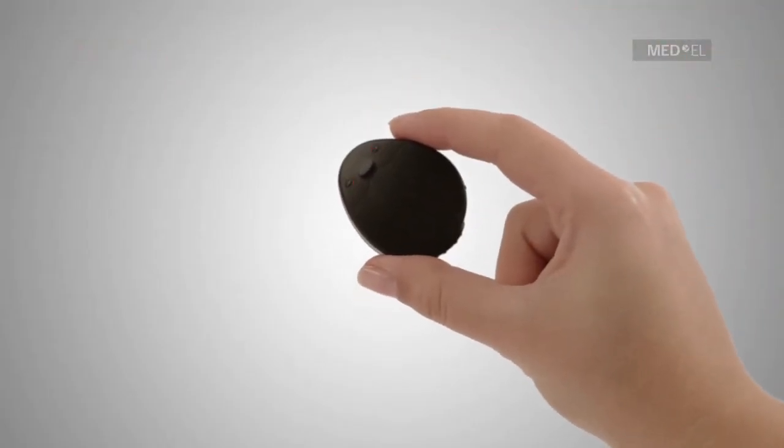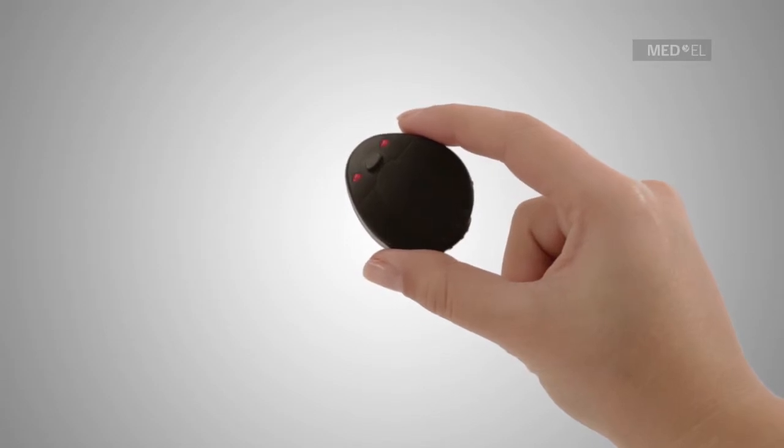Lights located on the control unit provide a visual indication to parents or caregivers if the battery is running low. Lights will blink continuously to indicate low battery.